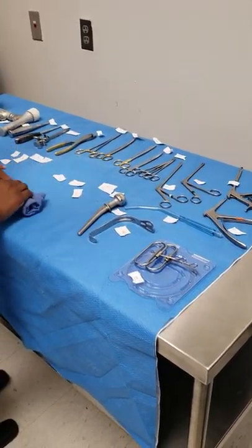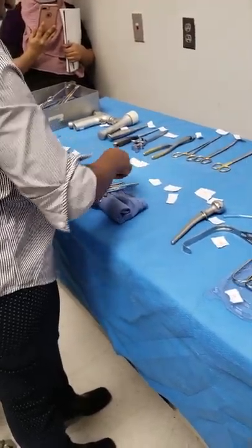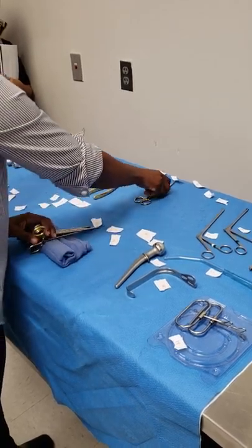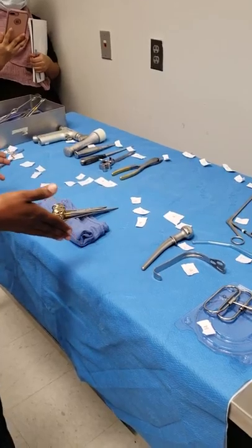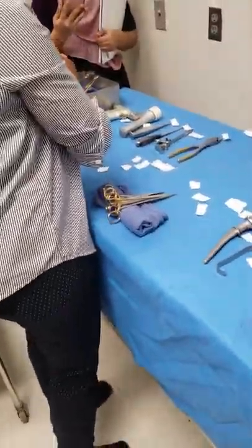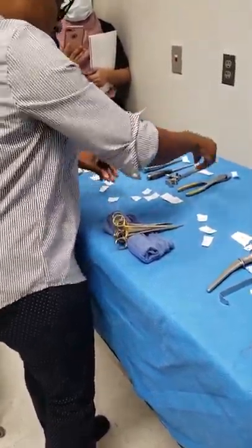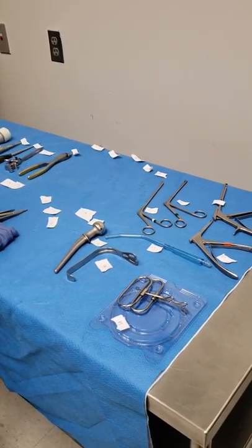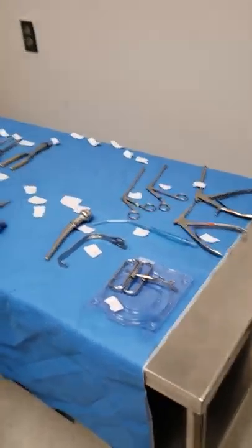I'm going to make my row and put it here. I'm always going to put them in the order I know — what goes first. My clamps go at the bottom. You want to condense them — these could have been over here, all condensed together. Same place, just kind of condensing them. So now they're all condensed.